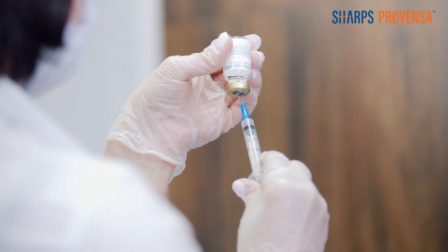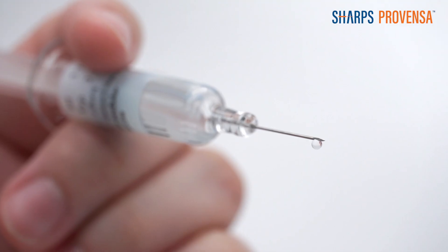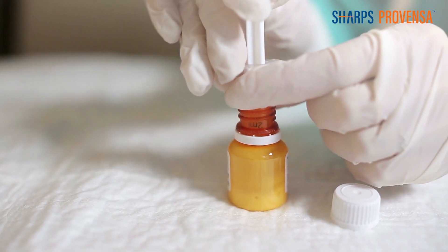Ultra-low waste eliminates costly overfilling of pre-filled syringes by pharmaceutical companies and delivers more doses from medicine contained in vials.